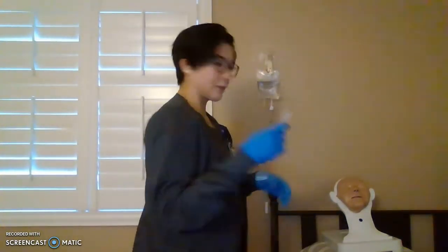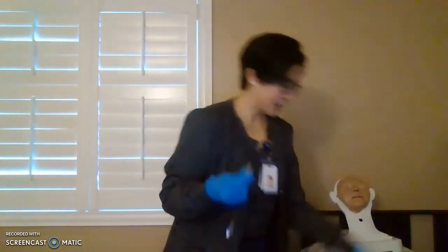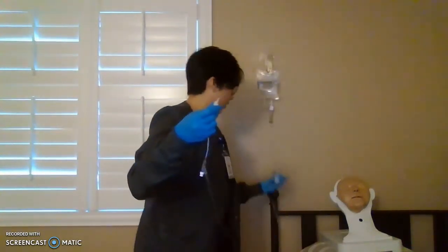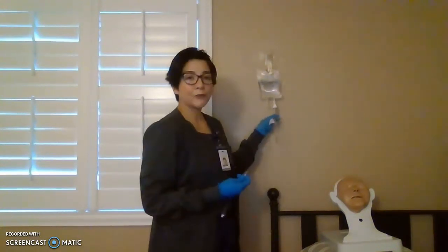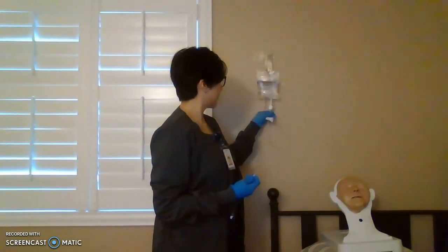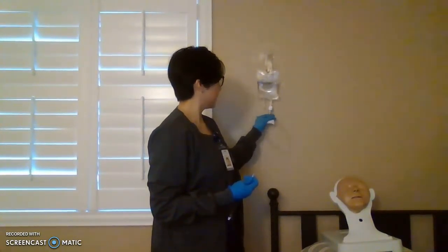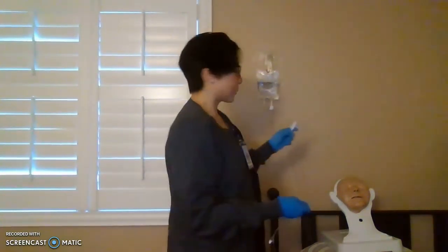All right, so we are still capped. Depending on the facility, for the purpose of this video, I'm going to remove it once we start priming. Keep the cap. We're going to recap later on. Okay, so now fill your drip chamber halfway through or 2/3. Do not fill it all the way through. You won't be able to see your drip. Okay, there you go. So now just give it a few squeezes. So now we're going to regulate slowly. We're just going to fill the tube with the fluid.